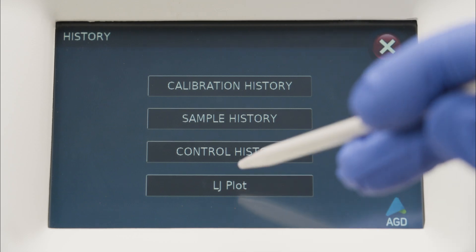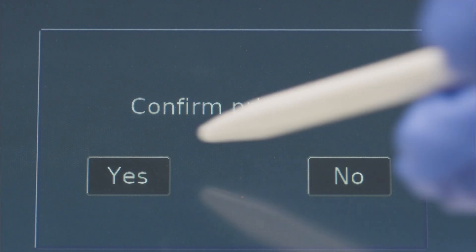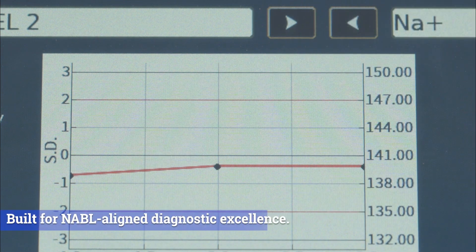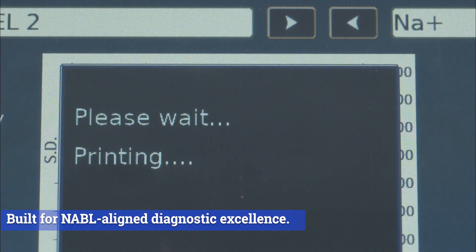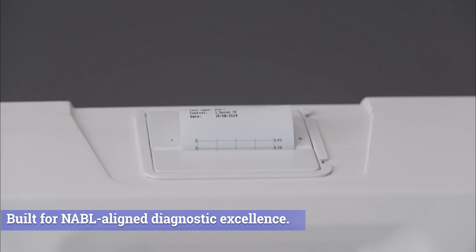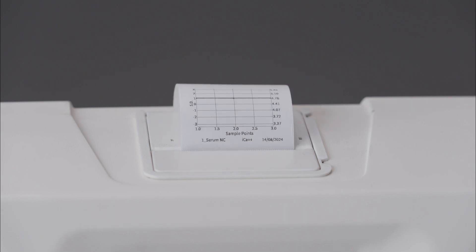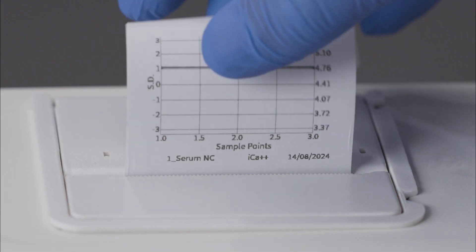Quality control is essential for reliable ion analysis, and our electrolyte analyzer includes a QC program with LJ plot functionality. This allows for effective monitoring and evaluation of the accuracy and precision of your results, ensuring the highest standards of quality.